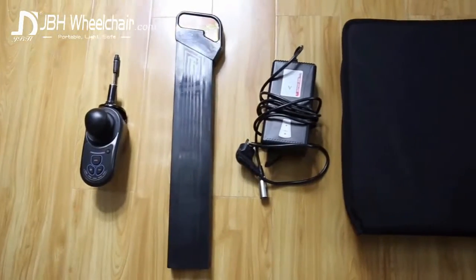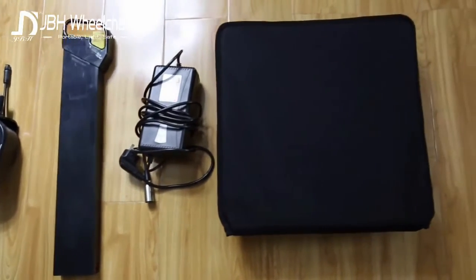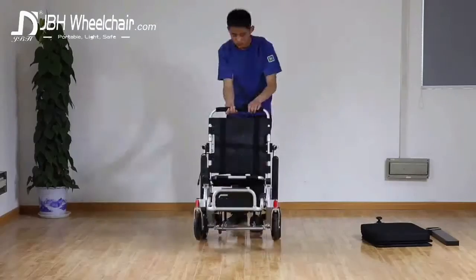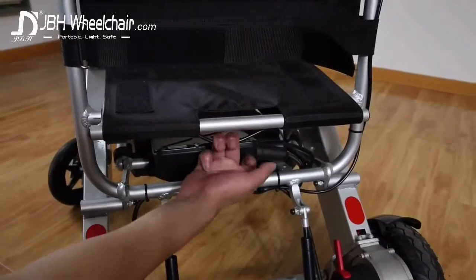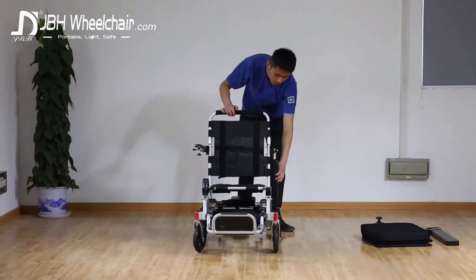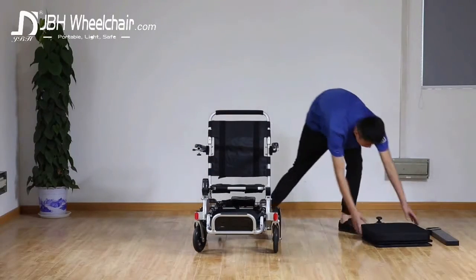Assembling the D05 is simple and quick, requiring only the absolute minimum of accessories. Flip the chair open in one movement and click the strong and reliable lock bar at the back. Flip down the armrests and place the easy-to-clean cushion and backrest into place.